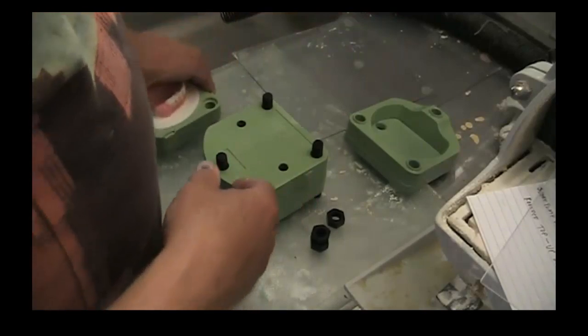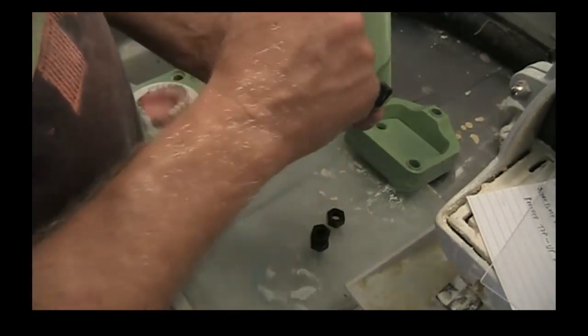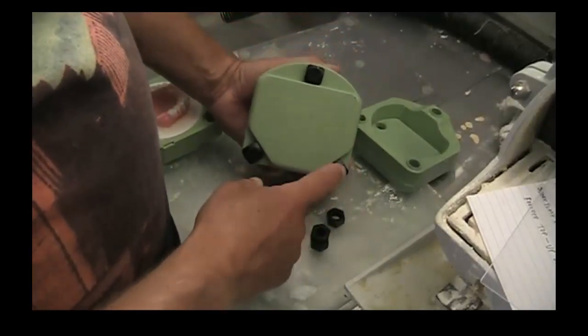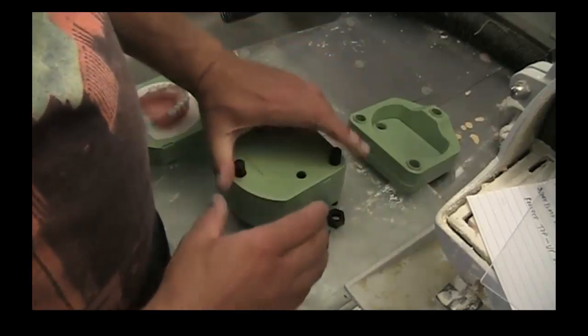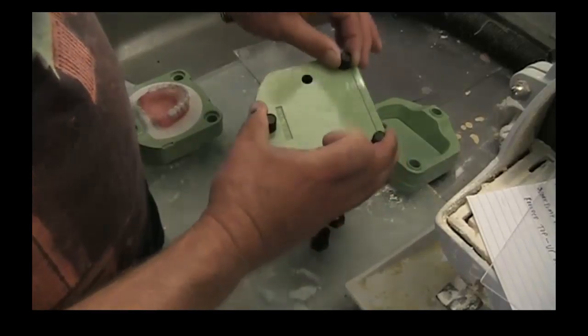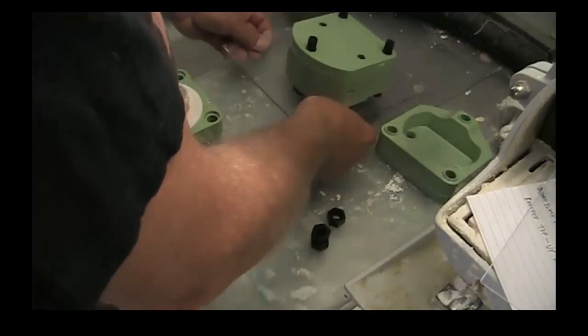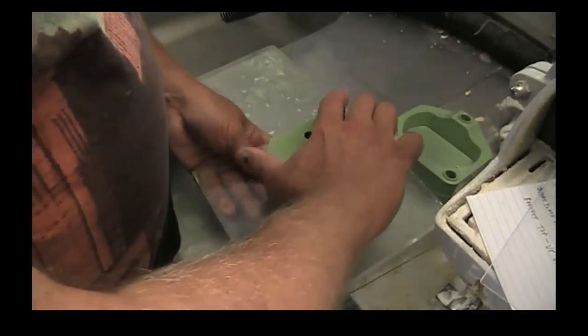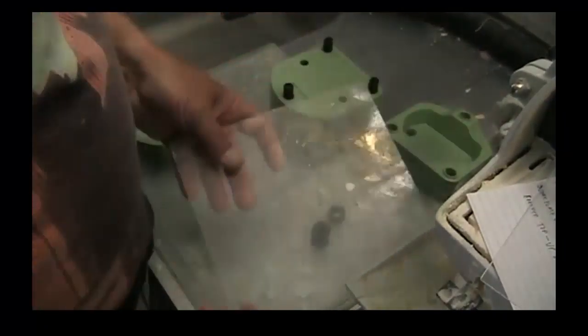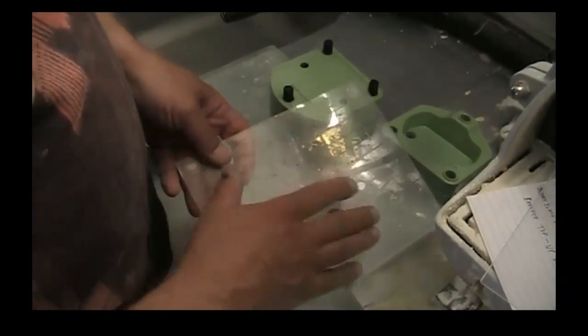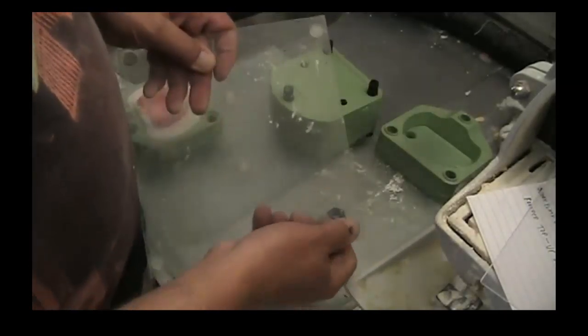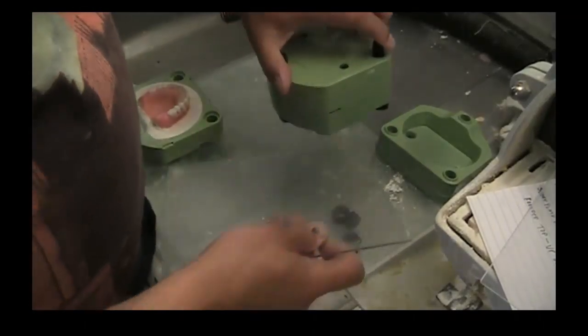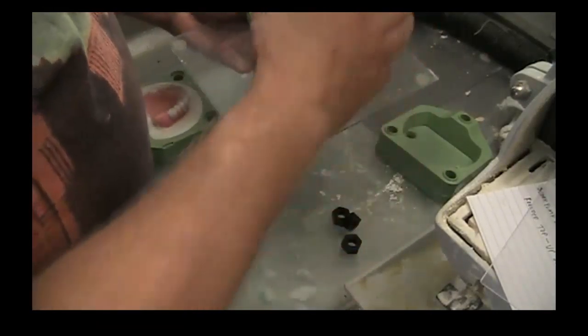I make my life easy with the manipulation of the flasks. On the reverse side there are these locking angles where the bolt is placed and it won't rotate, but it's kind of cumbersome to handle. I've figured it out by grabbing two of these at the same time if I need to transport around before I put the nuts on. But to make my life even easier, I got myself a piece of plastic. If you've visited my YouTube channel before, this piece of plexiglass is the same piece I use for my wax material when I'm basing out and boxing my models. I put some rubber feet on so they stand off the countertop, so I can pick it up rather easily. It's a great way to manipulate this and move it around before you get the nuts on.